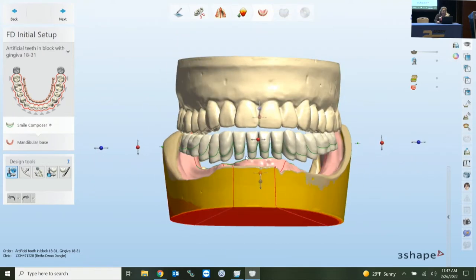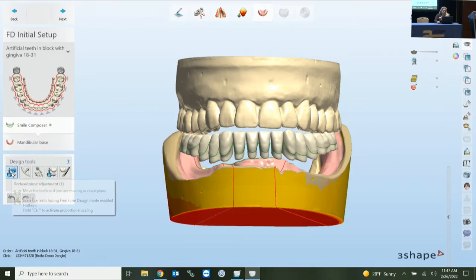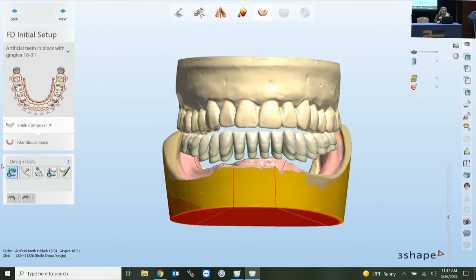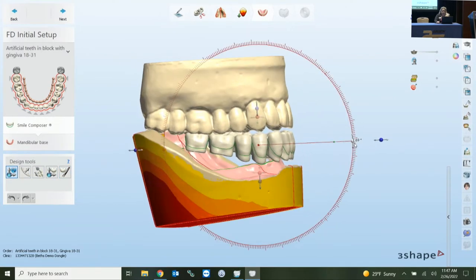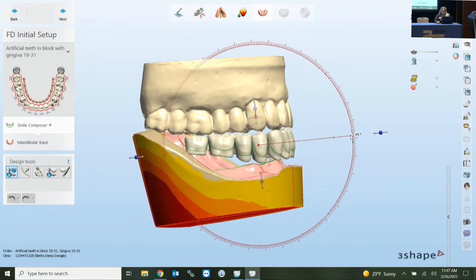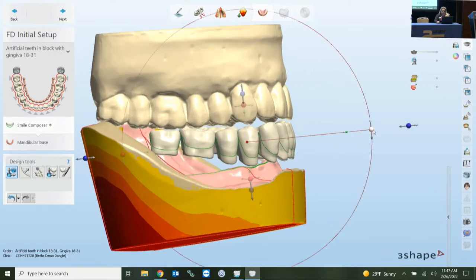In the design tools on the left, the most effective way to get through a denture design is to work left to right, because the leftmost tool is a global movement, then we move into sectional movement, individual movement, and then morphing. In the global tool, you can see it moves the entire arch. The horizontal line visible when zoomed in shows where that movement and rotation is pivoting from.